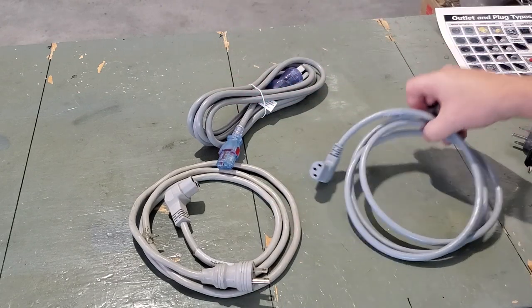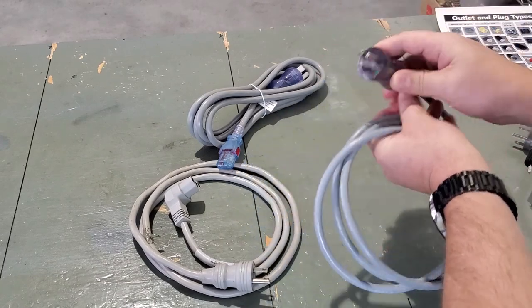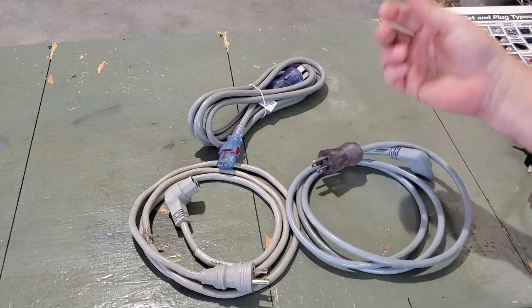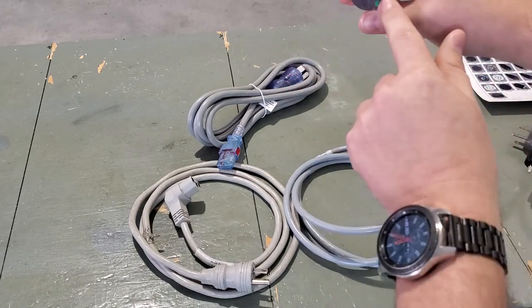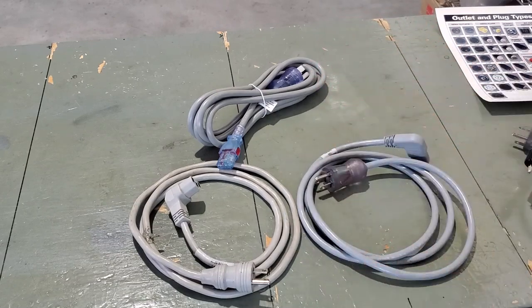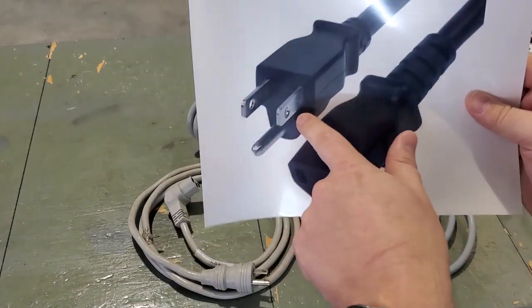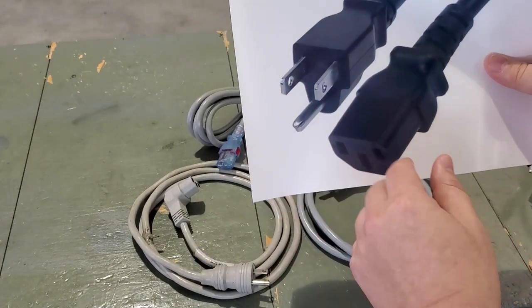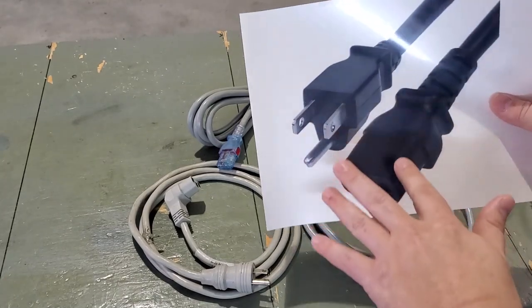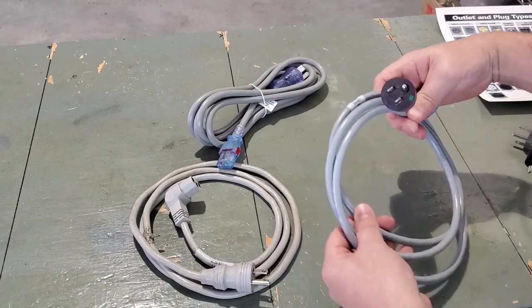The rating is governed by the plug installed at the end of the cable. The reason some cables have a different plug end is because they have a different rating. Like this one here — it's got a green dot, so you can tell this is a hospital-rated power cord. Whereas this other example is not hospital-rated; it's a traditional cord you might find on a printer or a computer. This should never be in a patient care area. That's why we have the hospital-grade type of cord.